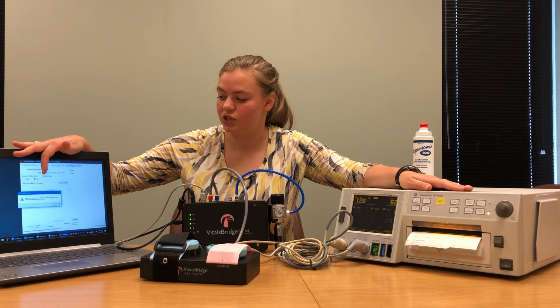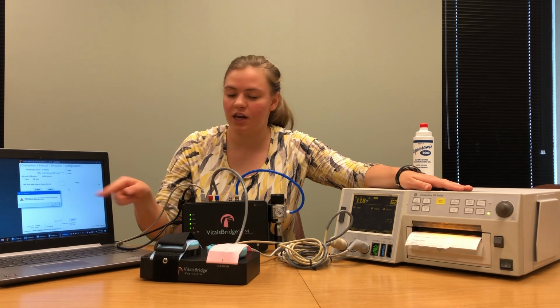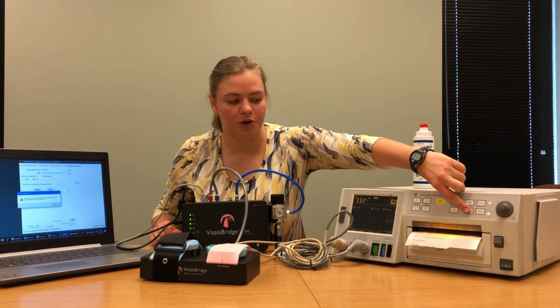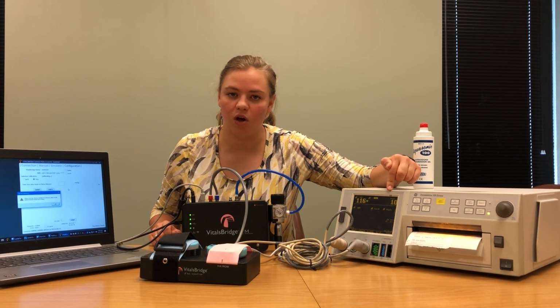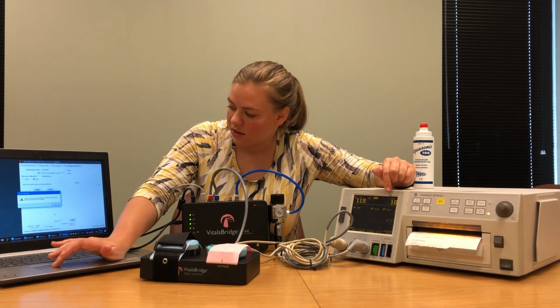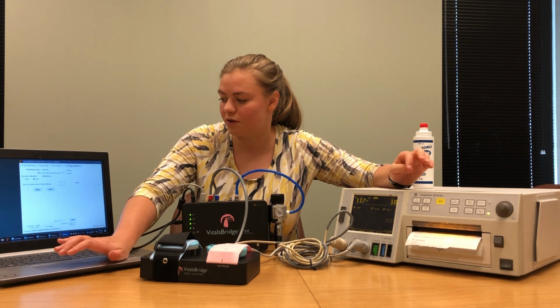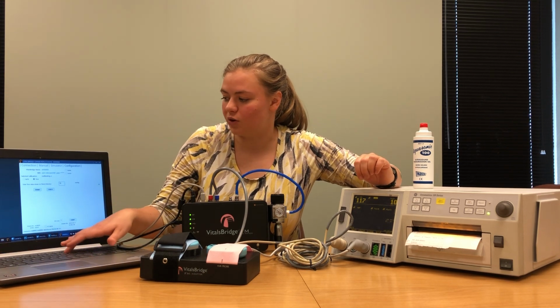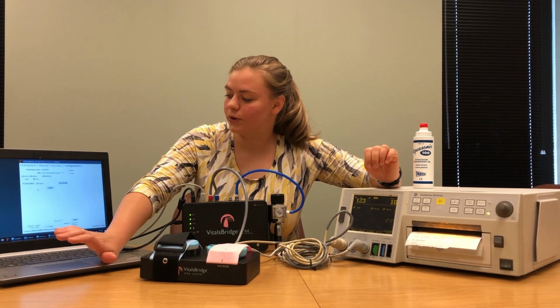When the countdown finishes, you'll see a little box window on your computer that tells you to set the UA reference value. Push the button on your patient monitor that says UA reference. This will change the TOCO signal on your patient monitor to a base value. When you've referenced out your patient monitor, select OK and then enter the reference value in the box on screen. Our reference value is 10. Once you've done that, push Submit.